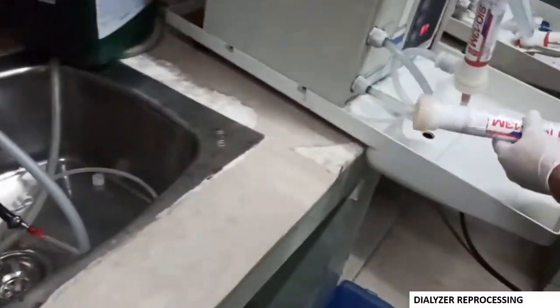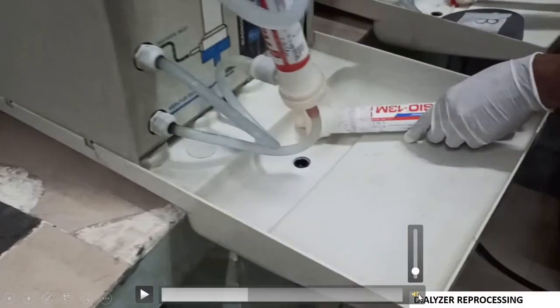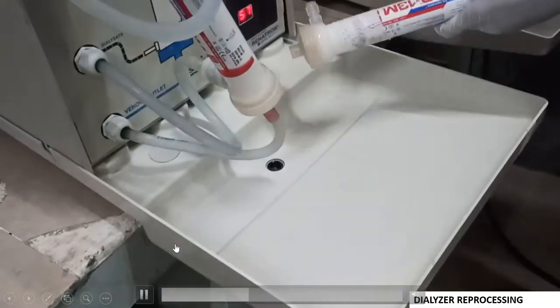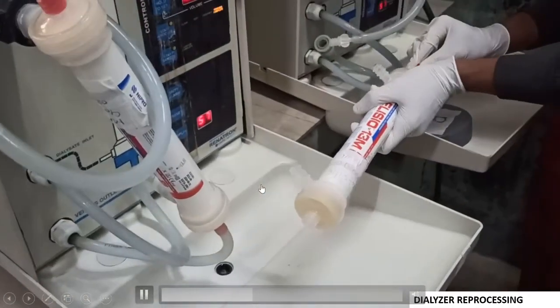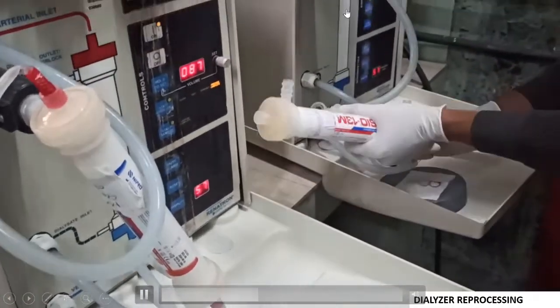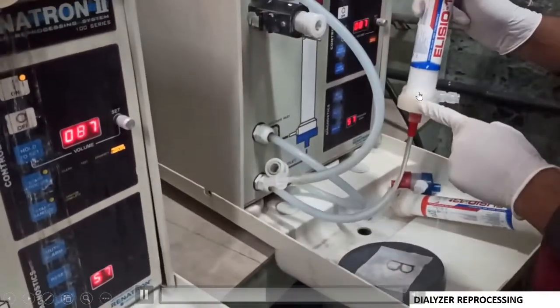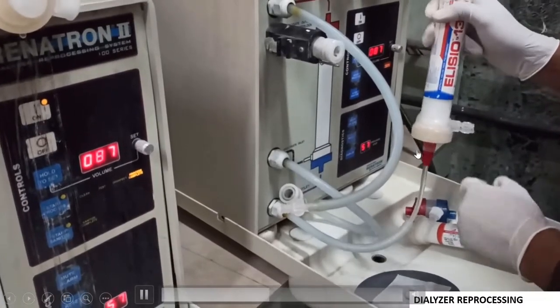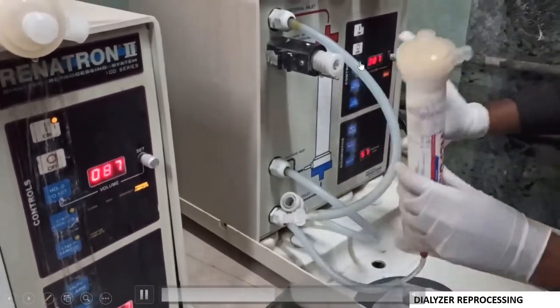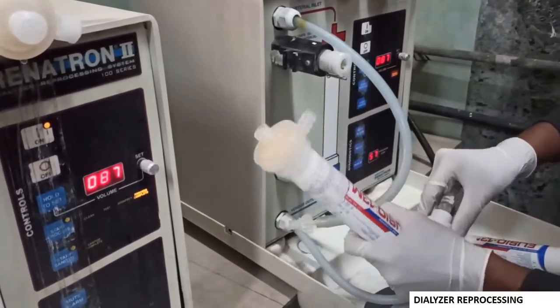After the initial rinsing, the dialyser will be connected to the machine like this. The markings are already given showing which tube to connect where. Accordingly, it has to be connected. The lower part is connected to the blood port, and these are the two dialysi-side ports. We have to keep the dialyser in position and connect the tubings.